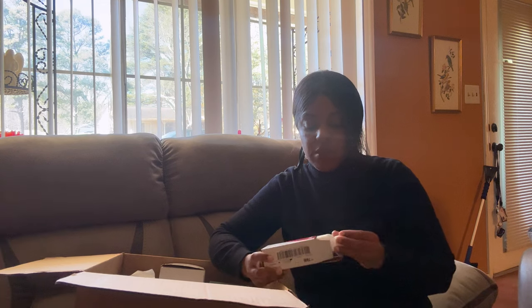I ordered two boxes of stoma powder. So much powder can be very helpful, especially for those with peekaboo stomas or ones that create extra mucus. The ostomy nurse gave me a name for it, but it's basically a small opening between your stoma and your skin. I used to use the powder to go in between that little crevice. I don't anymore because it closed up and healed more since surgery, but when I was first post-op it was very helpful.